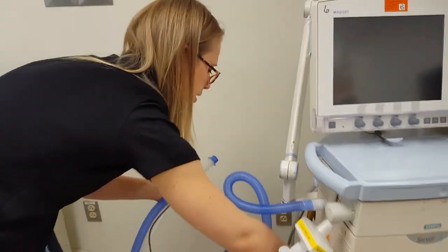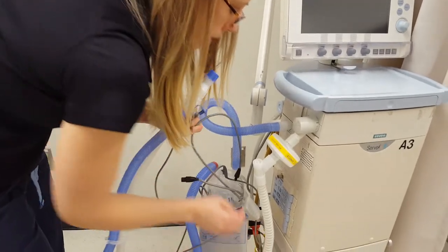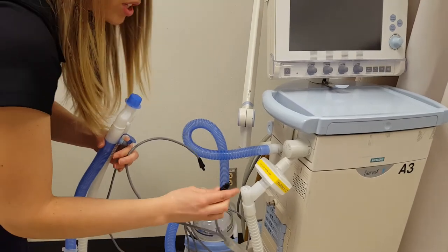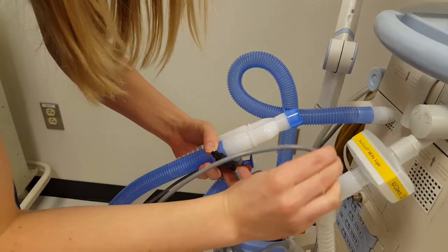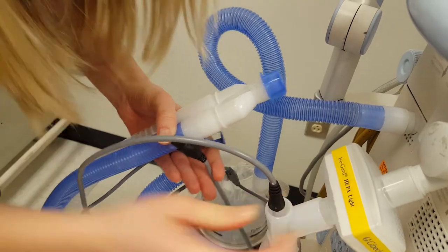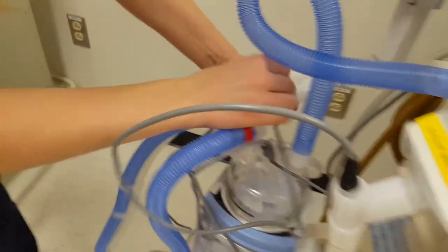The last step for the heater probes is to connect the two cords: yellow and blue. These are not patient-specific; they stay with the heater. There's a three-prong and a two-prong connector — they can only go one way. The two-prong connects on the expiratory side, and the three-prong connects on the inspiratory side.